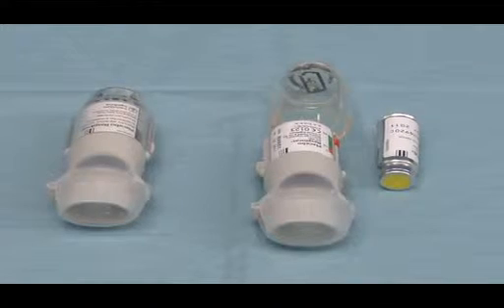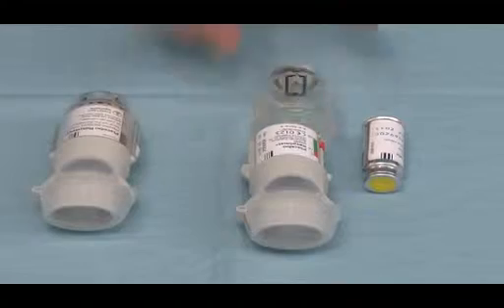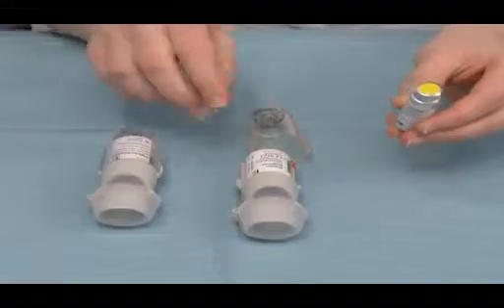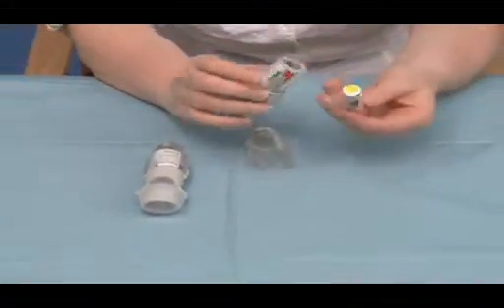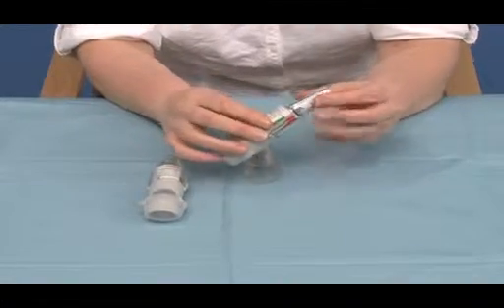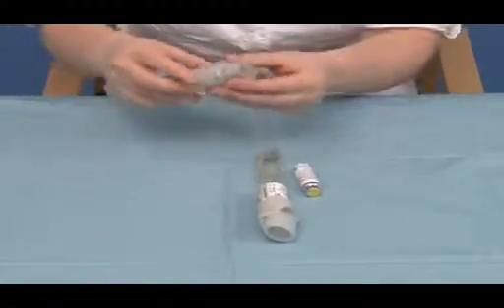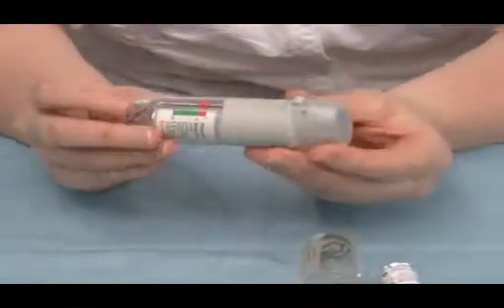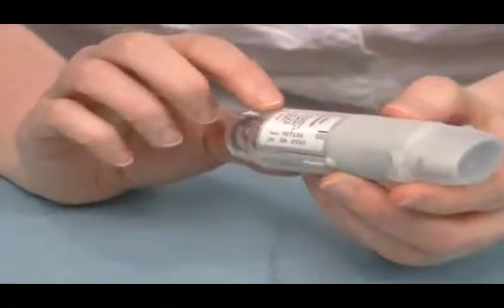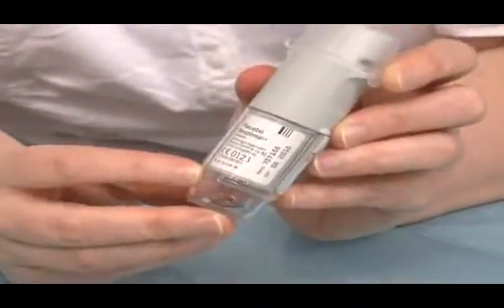The next inhaler we're going to look at is the Respimat, which is prescribable with tiotropium. Initially, when patients get the inhaler, the canister is separate and has to be inserted into the device, with the yellow cap at the bottom. This is inserted in fully prior to putting the cap on. The inhaler would then look like this when the canister is inserted. The inhaler also has to be primed prior to using, and there are arrows on the device to indicate how you would turn the device.